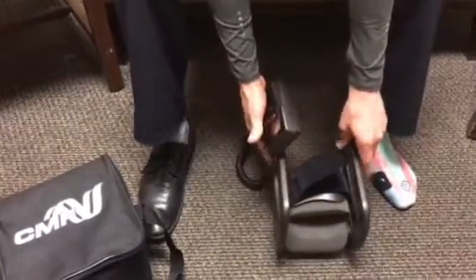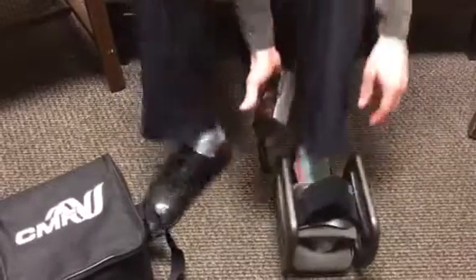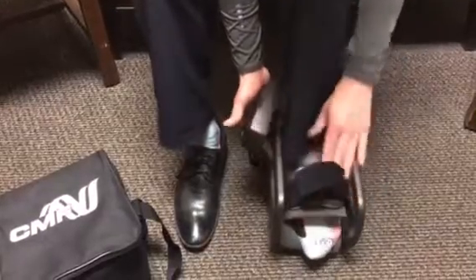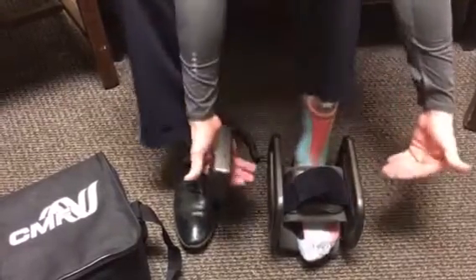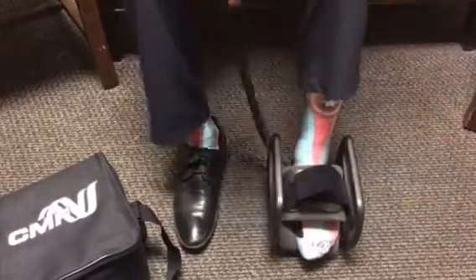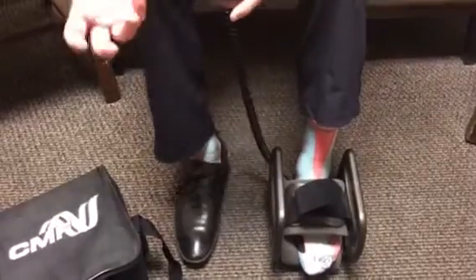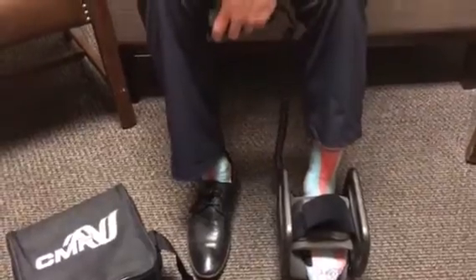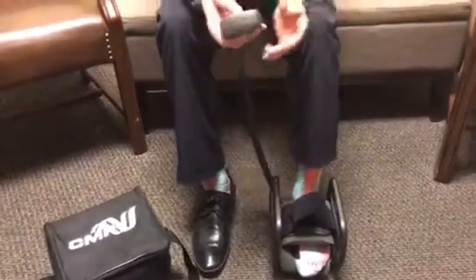When you want to start your treatment session, you take the bone stimulator out and place your foot. I'm going to be acting as if I have a mid-foot fracture, so I want those two coils shooting across the fracture site. Anywhere in between these coils will receive some osteoblast production from the electromagnetic wave, but that fracture site will actually be targeted. That's what the science has shown us.